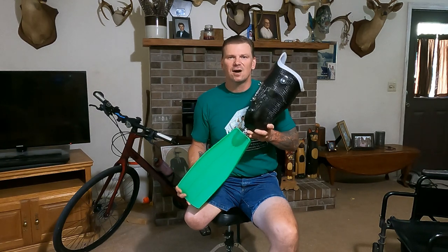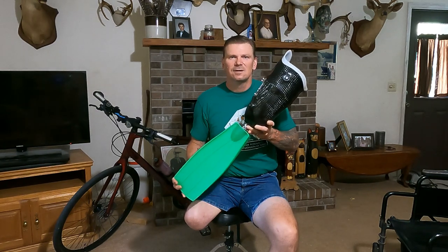Another thing Randy's done is this product is approved by the VA, 100%. So if you're an amputated veteran, then this product should be 100% free of charge to you. That includes the socket, liners, and the fin. So make sure you get with your VA, your prosthetist, and Amp Fin, and see if you can work it out for yourselves.